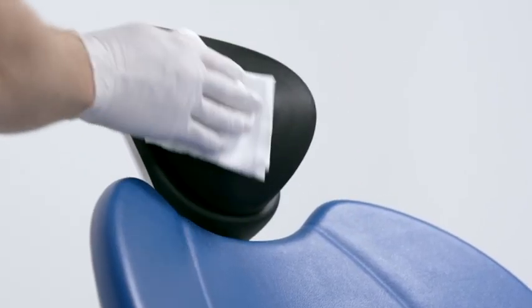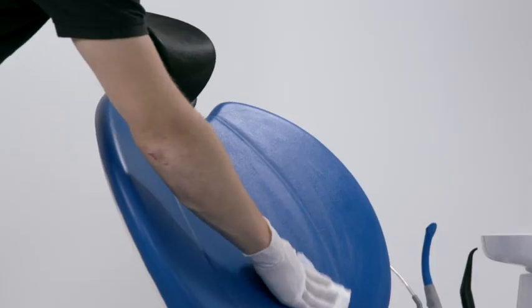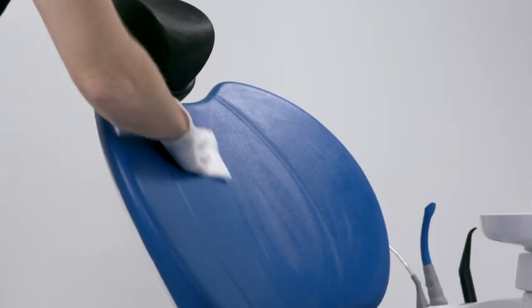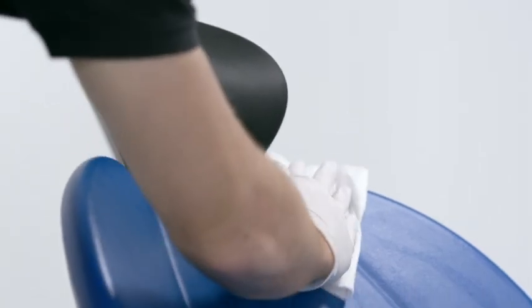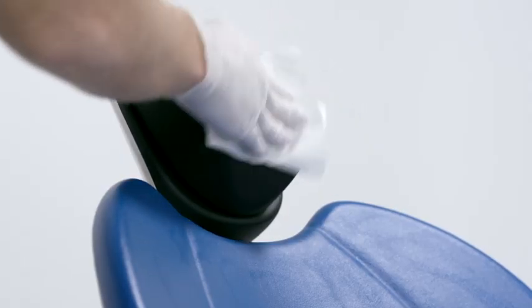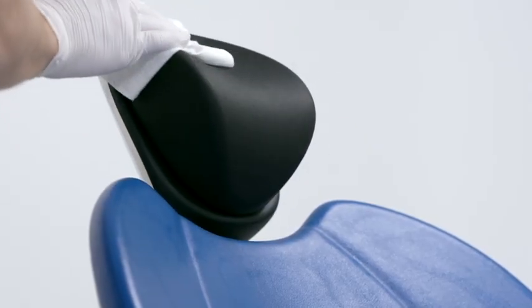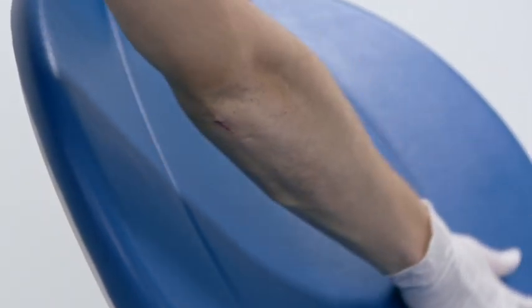Clean and care for the upholstery of the treatment center with a cleaning agent approved by Dentsply Sirona. Be sure to wipe the upholstery dry to remove excess cleaning agent.